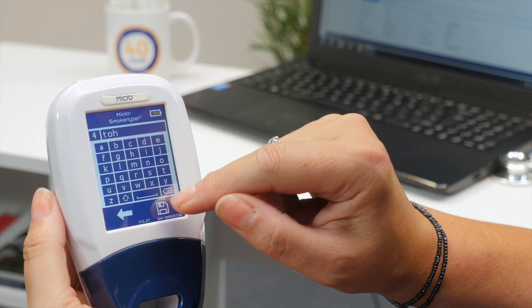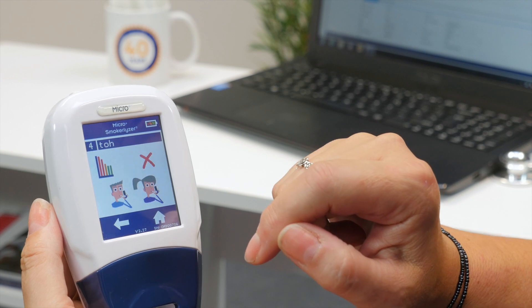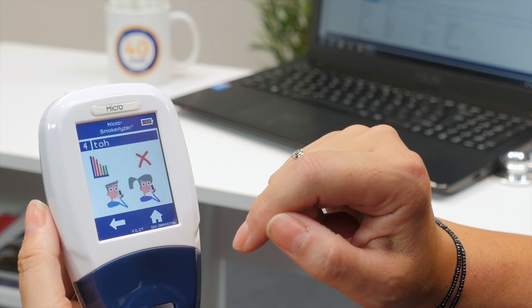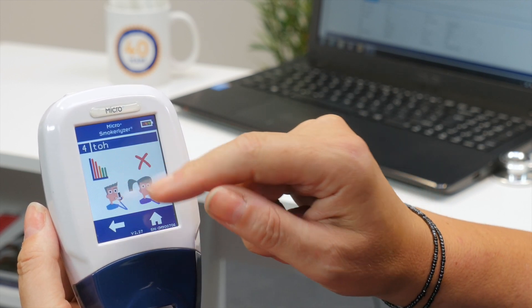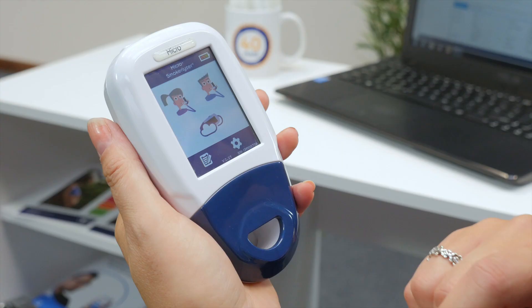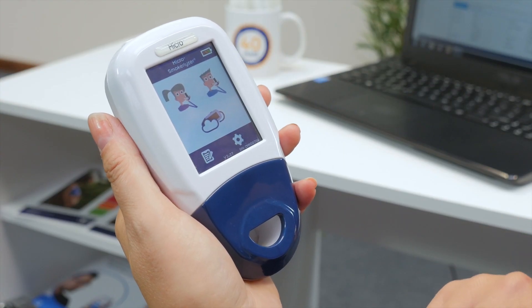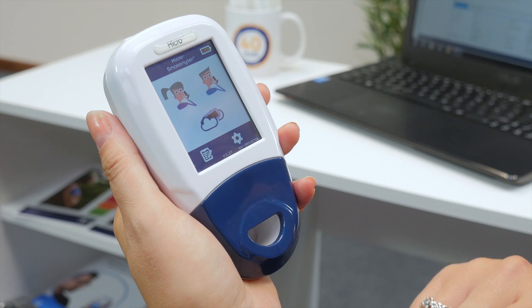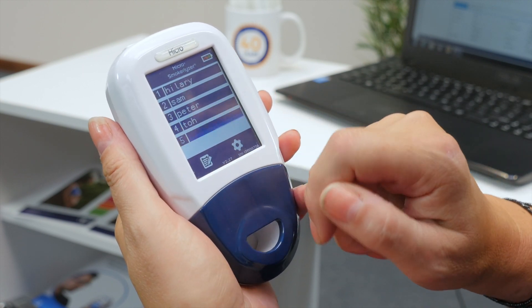Once you've entered this, click the save icon to register the changes. You will now be able to see a graph of the patient's saved results.